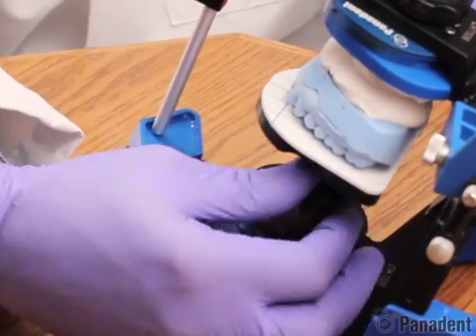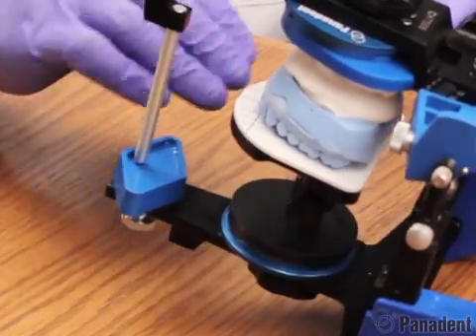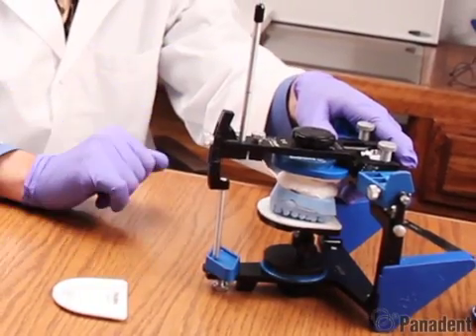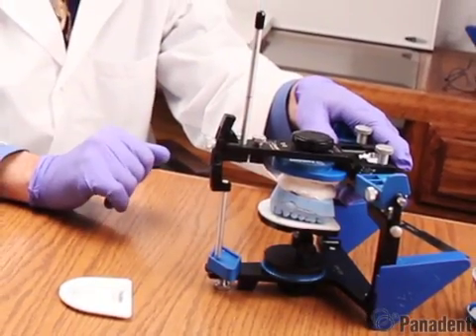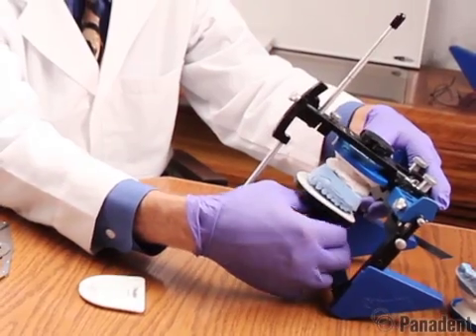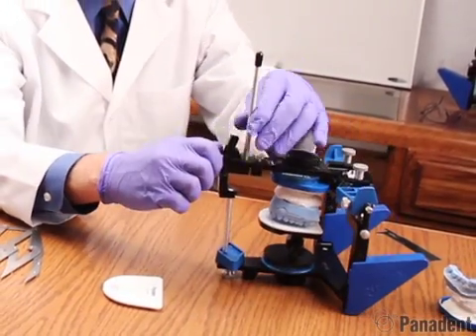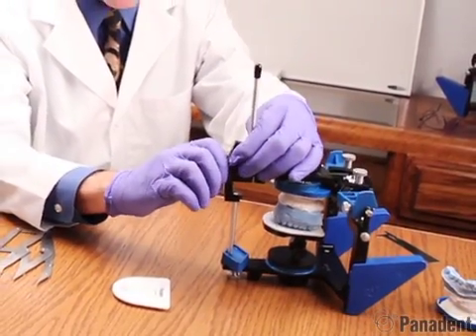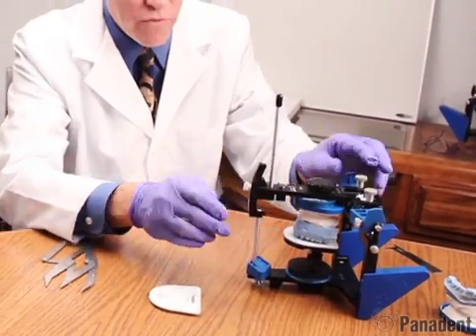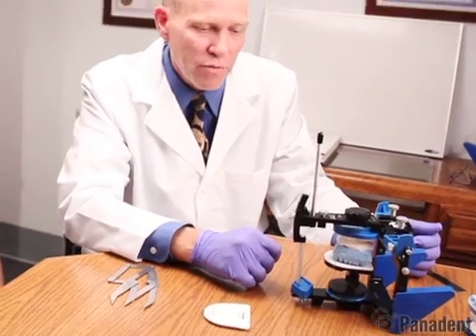The technician can then wax all the teeth to the platform, and when you place it in the mouth it will have a two degree cant to the occlusal plane. Otherwise, you can evaluate the cant to the occlusal plane in relationship to the horizontal table and just raise the buccal cusp up from the waxing guide, creating a curve of Spee or slight plane of occlusion.